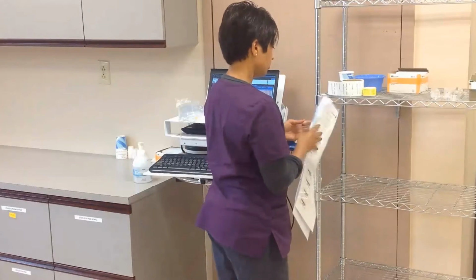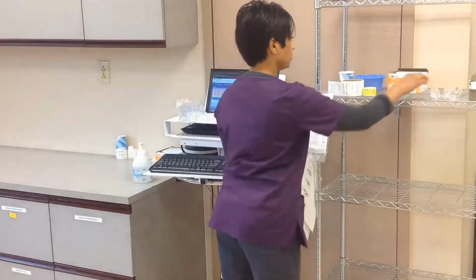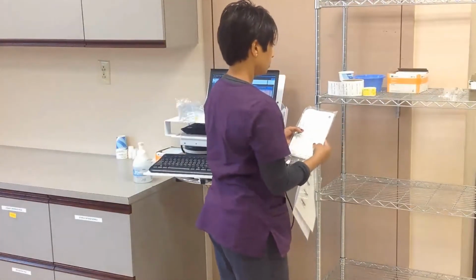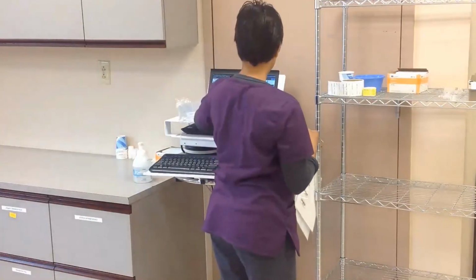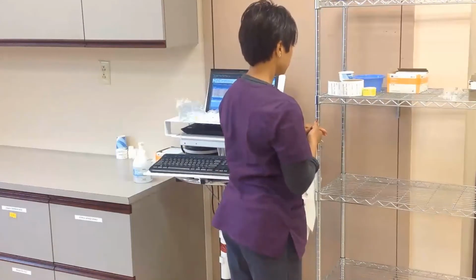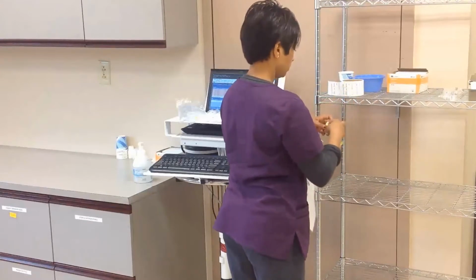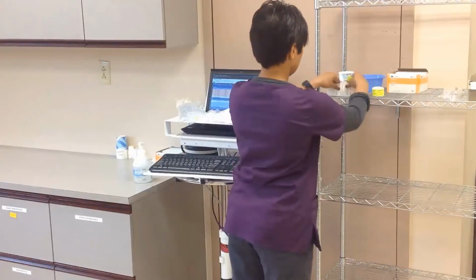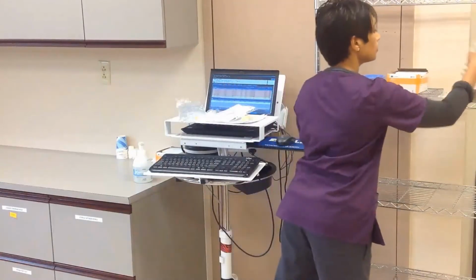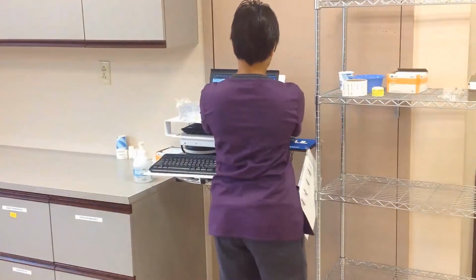For this validation, you will need Alaris primary IV tubing and 1 10 milliliter 0.9% normal saline flush for a PICC line. You will also need an IV pole for priming the solution with the Alaris pump, 1 green tubing label, 1 white medication label, Curos caps, Curos tips, and alcohol wipes.